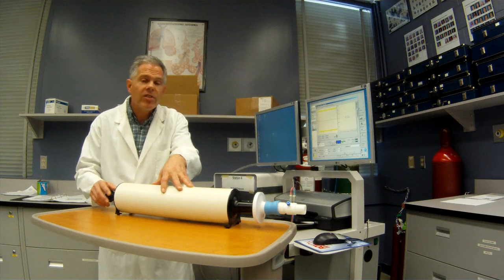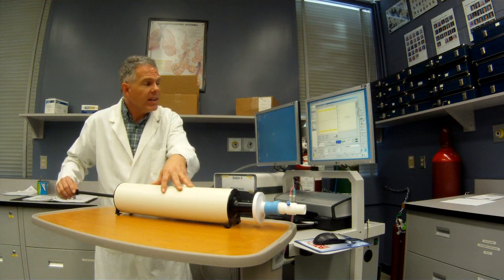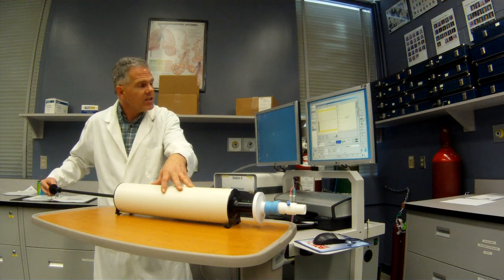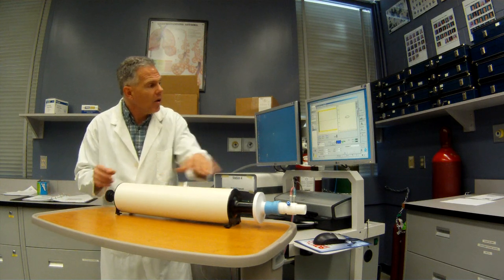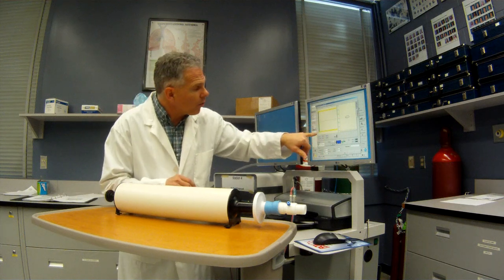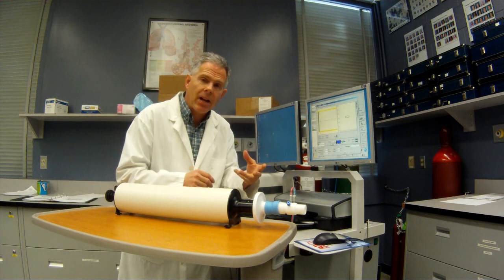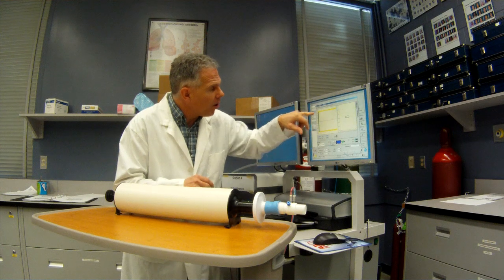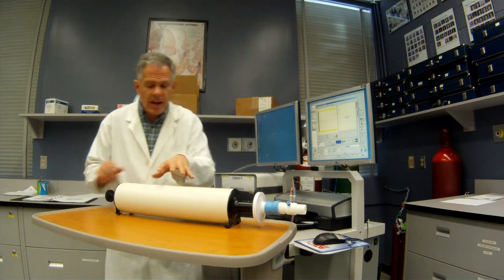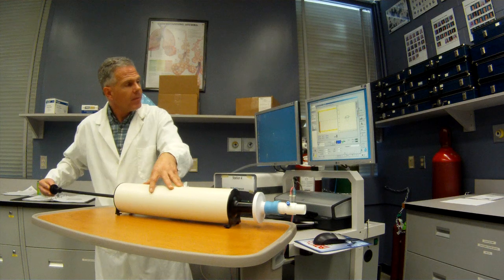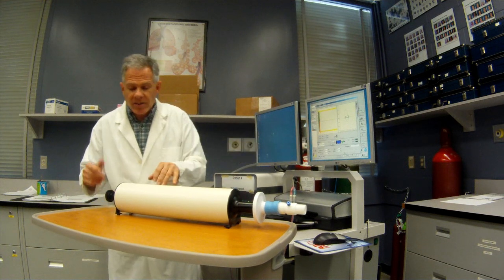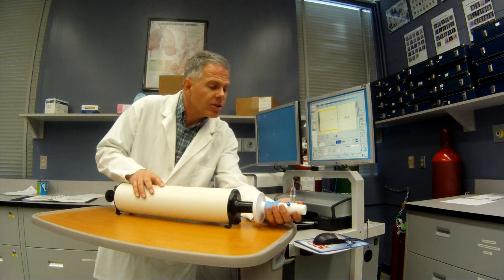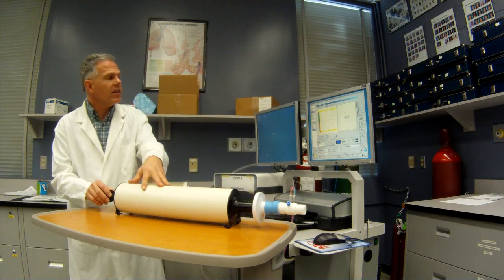There's no criteria here. The computer doesn't tell you what to do. It doesn't know. It says I'm just measuring the flow rate and the volume. We'll see how it goes. So here at very low flow rates, I get adequate volumes to measure me almost exactly 3 liters. So let's try it at a medium flow rate. Now that was a little out of range because I think I might have jerked a little bit as I was pulling back on that. So let's try that again.